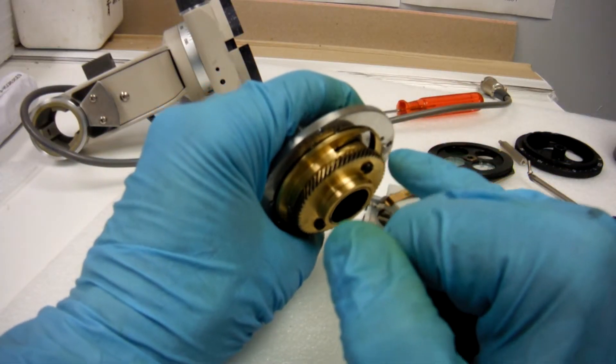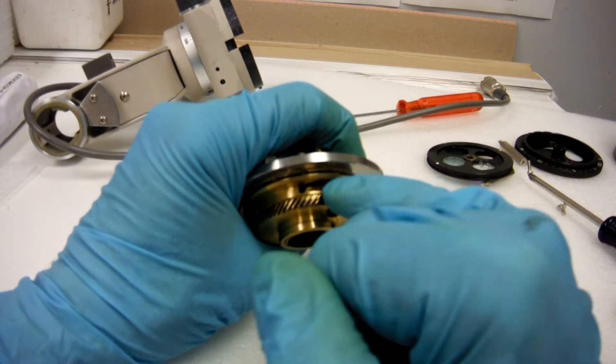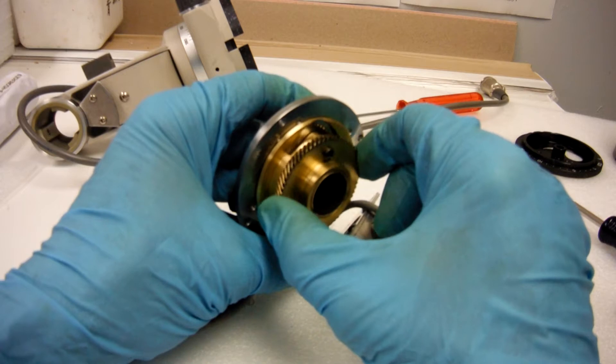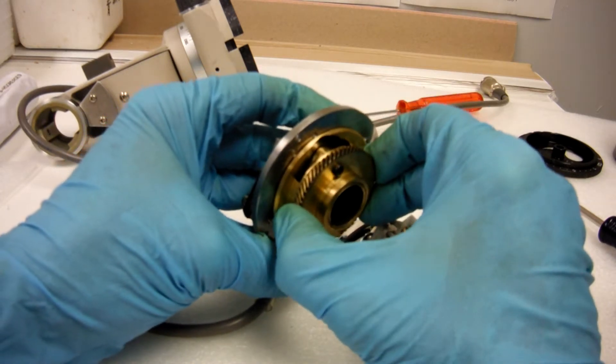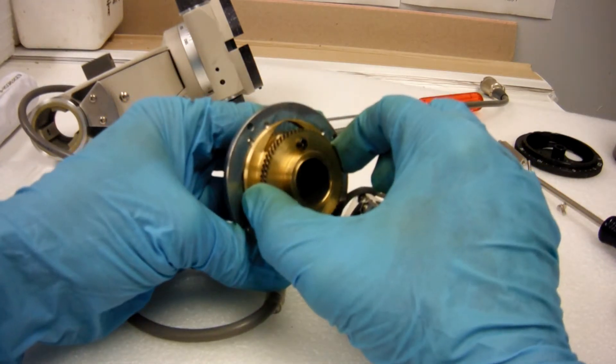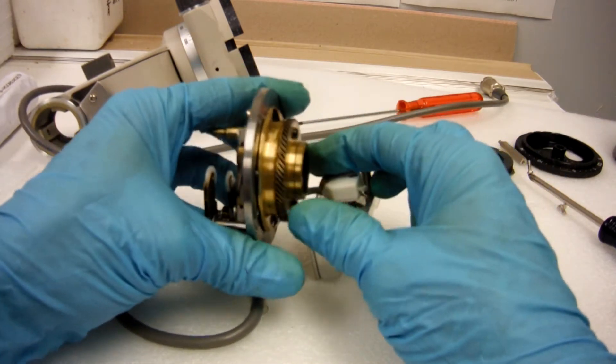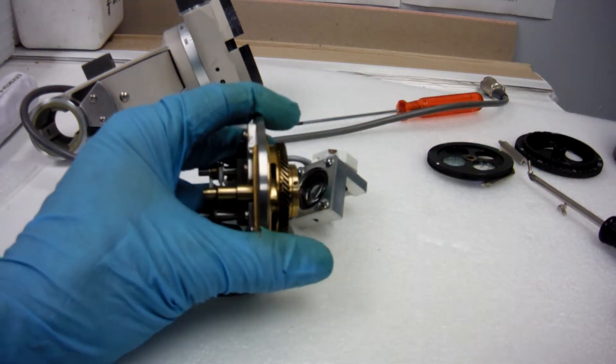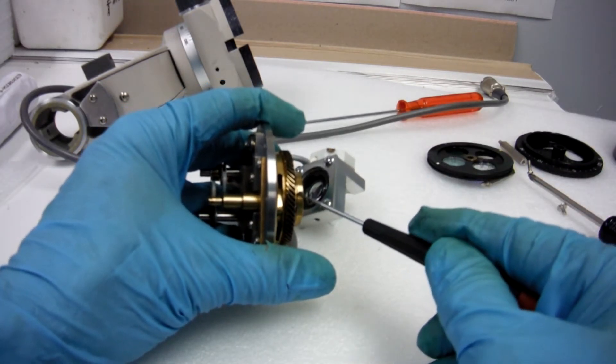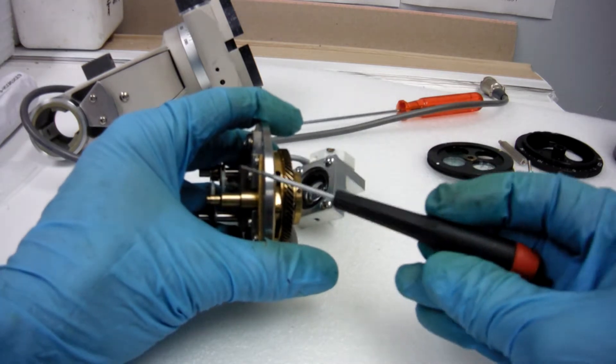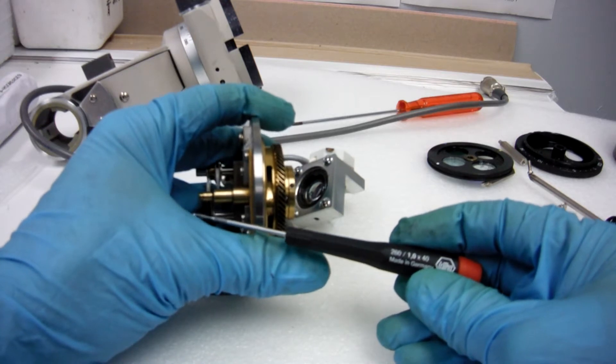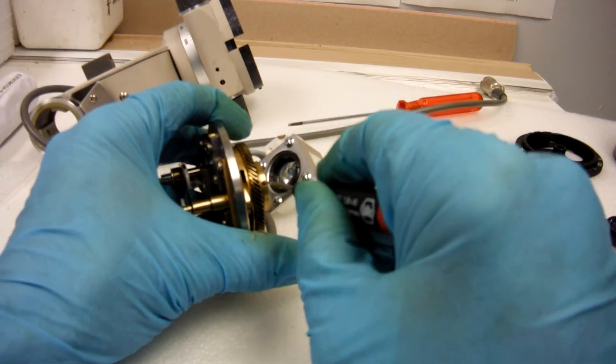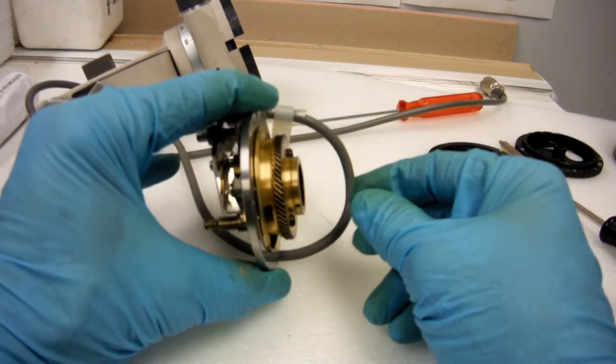We need to clean this cam and the tube behind it. This grease that's on this gear out here, that's probably okay. You don't need to really clean that. It's probably fine. To be able to take this gear and cam off you have to take off this outer nut, and it is held tight by a lock screw. You'll need a small jeweler screwdriver to take that off. This one is a one mil. That's small enough to take it off. Unscrew it.